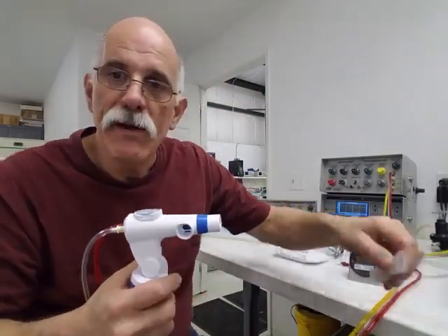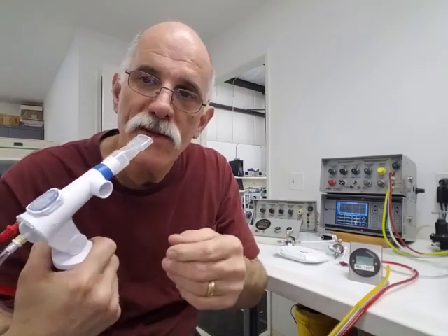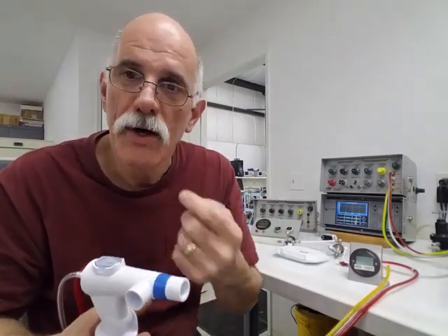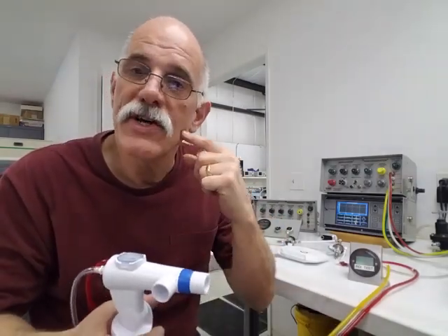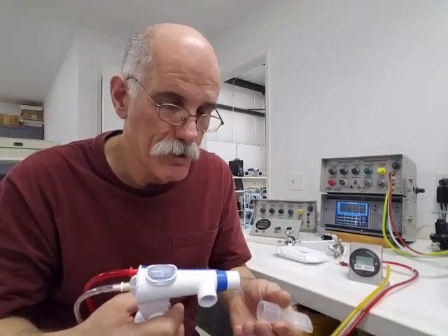Now, this can be delivered to the patient via a mouthpiece, or it can be a mask, or if the patient is intubated, it can be in their intubation tube.